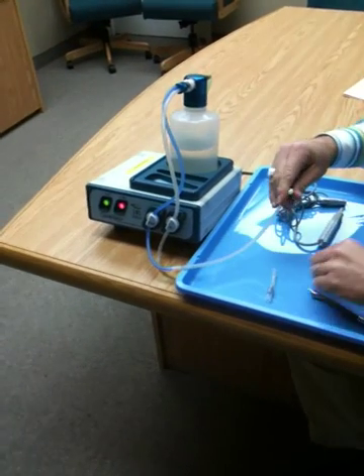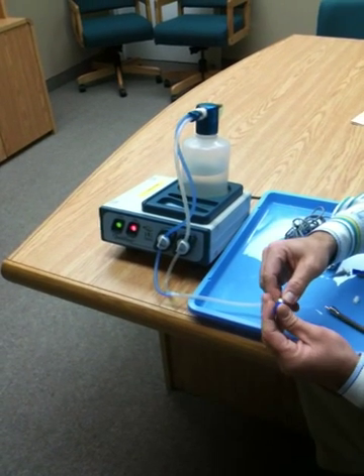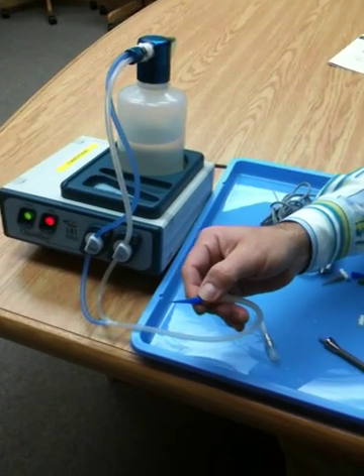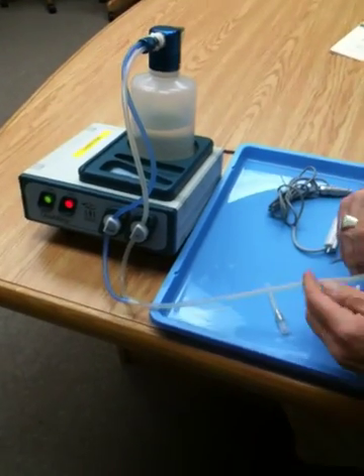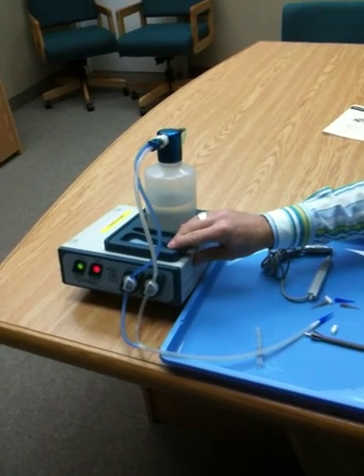There are all sorts of adapters available that come as an accessory kit with the Quick Rinse. These are closed nozzles that you can cut down to whichever size you like to fit whichever opening you're trying to adapt to. And that's in a nutshell how the Quick Rinse Automated Rinse System works.